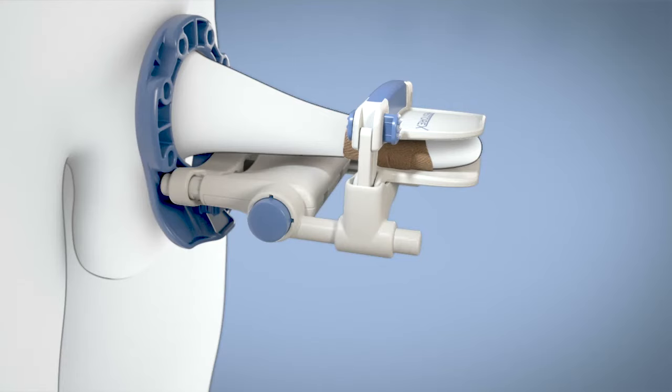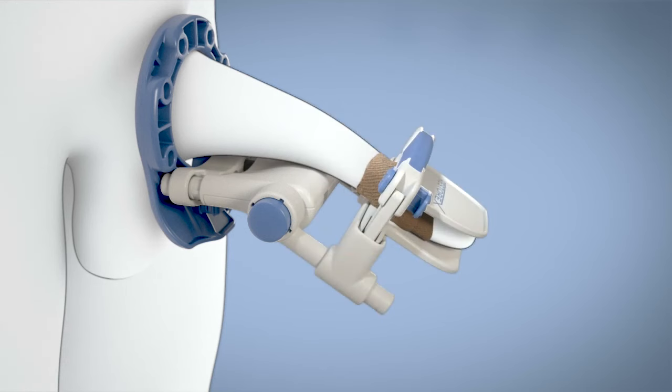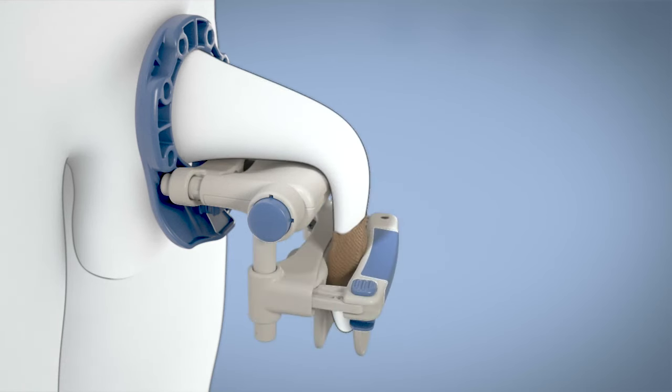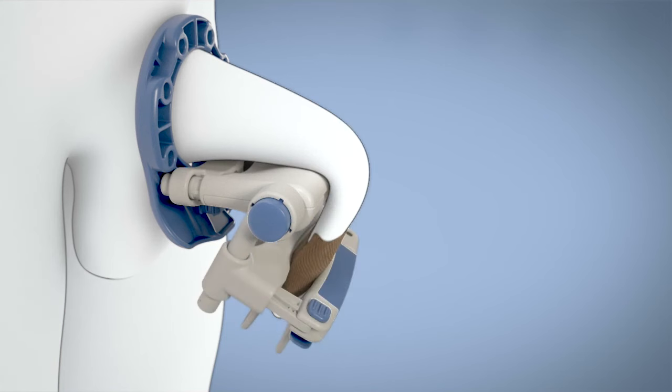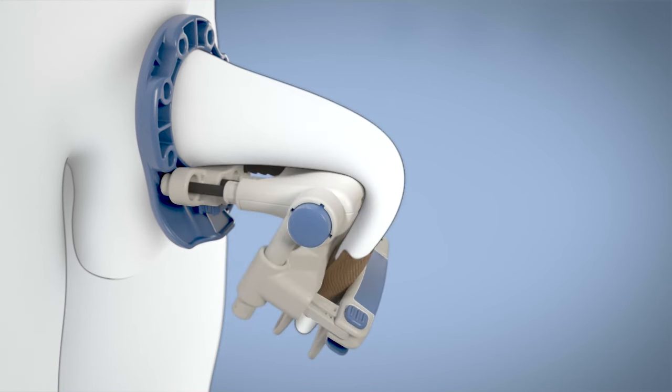Restorex includes four stops for opposite angular force. It may take some time to get comfortable enough to achieve the recommended third or fourth stop. Do what is possible at first and work your way up.